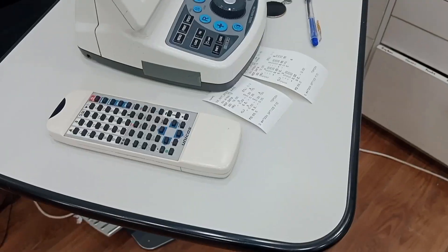This video is about the digital auto refractometer and keratometer, model number KR800. We are going to learn about different sections, components, and parts, how to make power adjustments, and how to diagnose cataracts with the help of this auto refractometer.